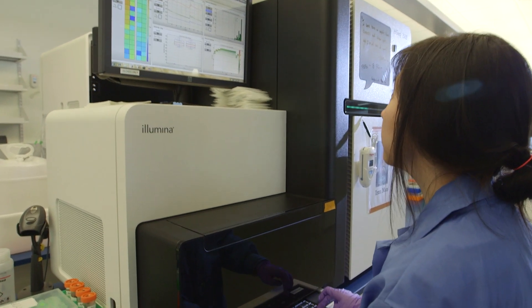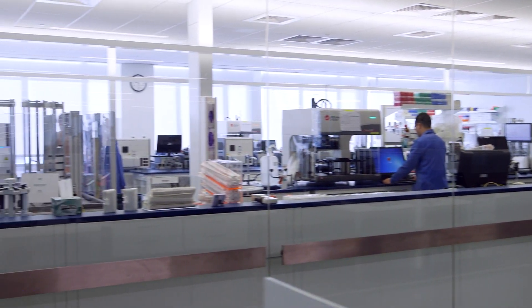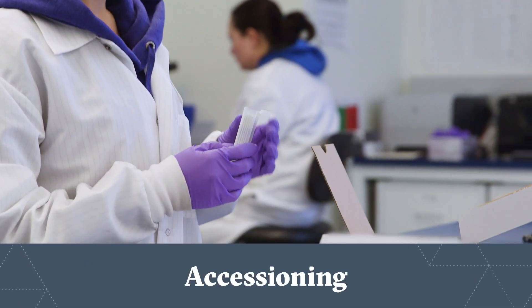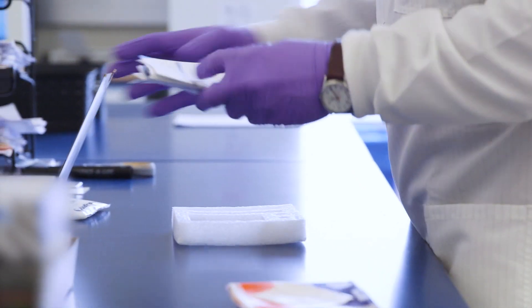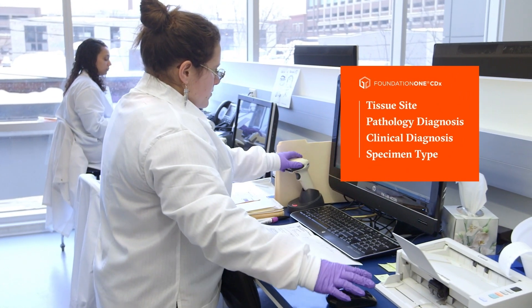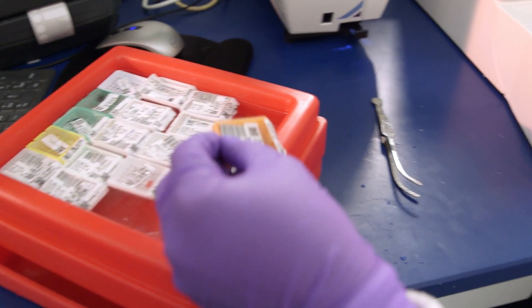Once an oncologist or pathologist orders a test from Foundation Medicine, a sample is delivered from the pathology lab to our accessioning team. Once the patient's tumor sample is received, our accessioning team ensures that we have received the right documentation, including the test requisition form and a pathology report. A unique ID number is created to track the sample throughout the testing process, and information about the sample received is imported into our LIM system.